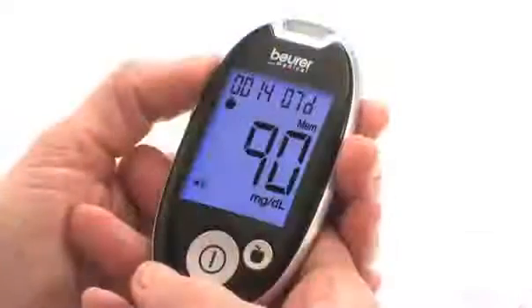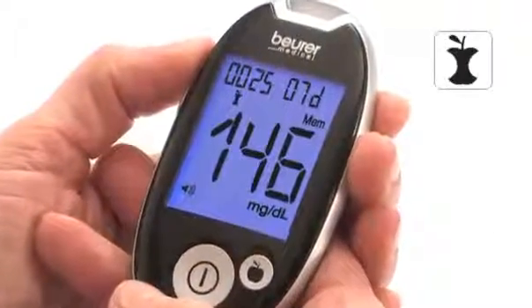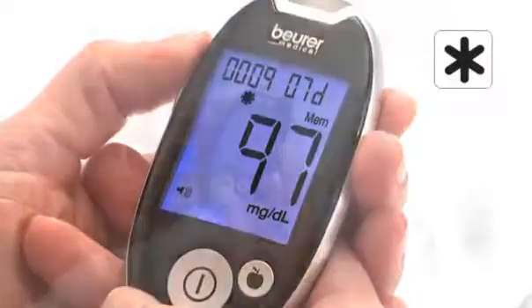The simple measurement marking for values before eating, after eating in general, enables optimized management of diabetes.